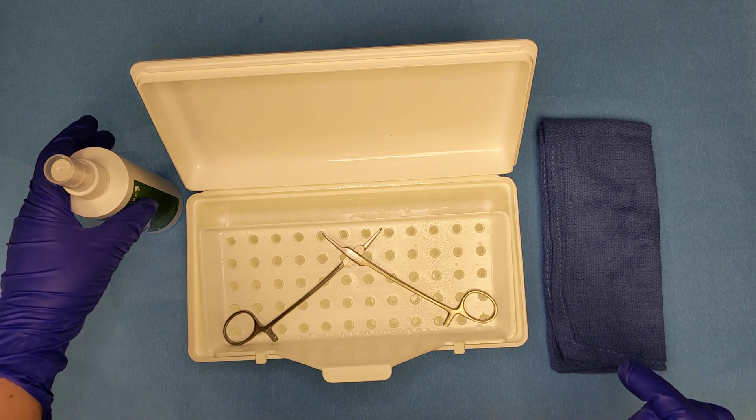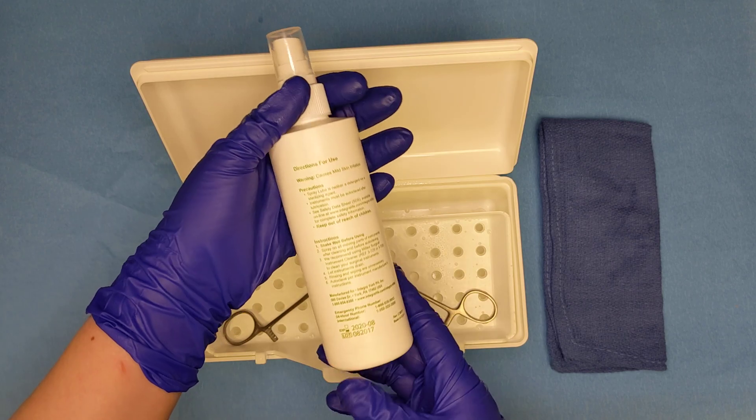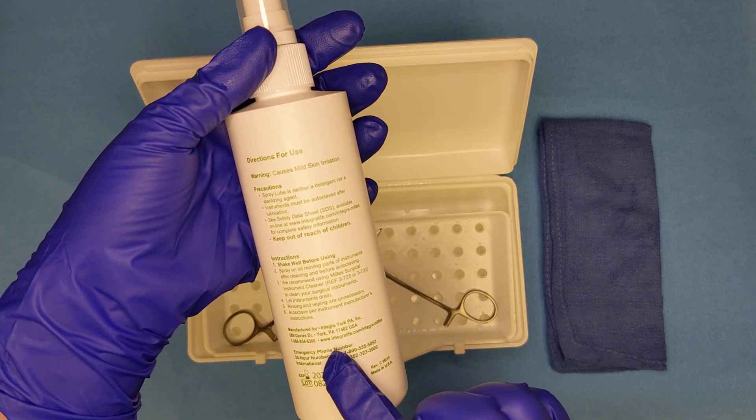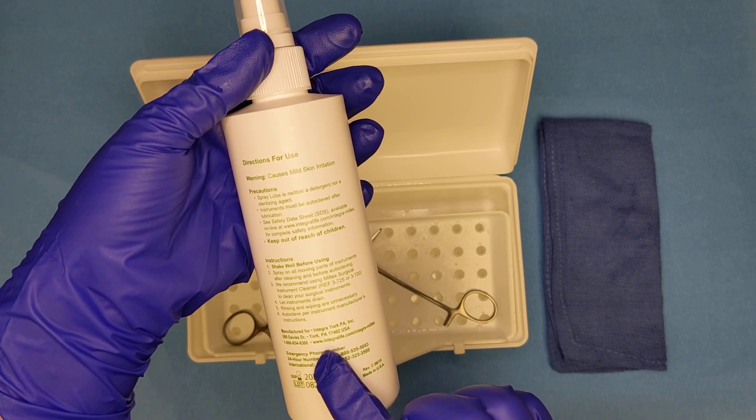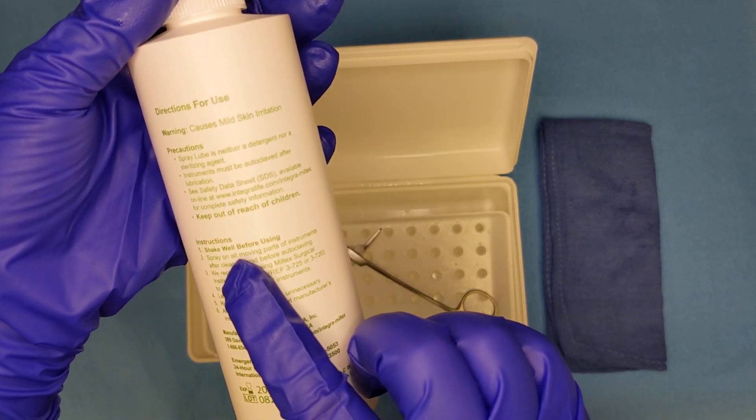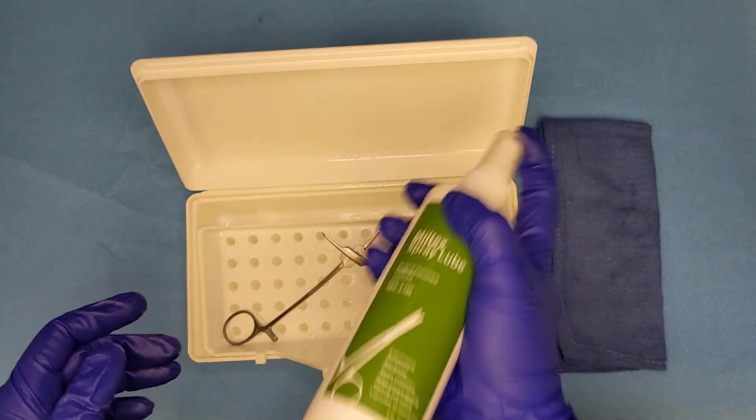Next we're going to read the instructions on the back of our lubricant to see if we need to either dilute it or perform any other functions before using. This one says we need to shake well before using, so we're going to give it a good shake.